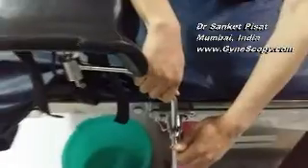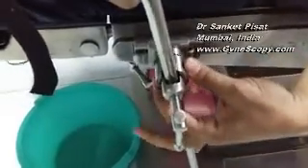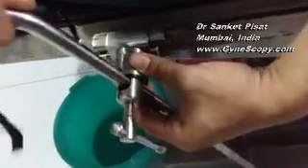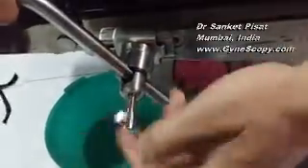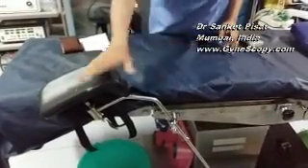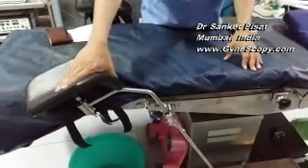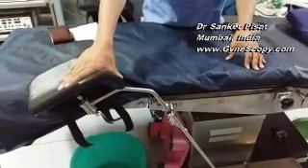Every OT table on which you are planning Gynaec endoscopy must have the facility to turn the stirrups to the desired angle so that the patient can be given what we call an extended lithotomy position. In this position, the patient's legs will rest at a level where her knee is parallel to the anterior abdominal wall, and the ports placed on the sides of the patient will not be a hindrance in doing surgery.